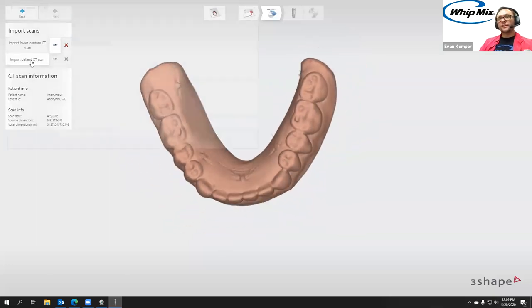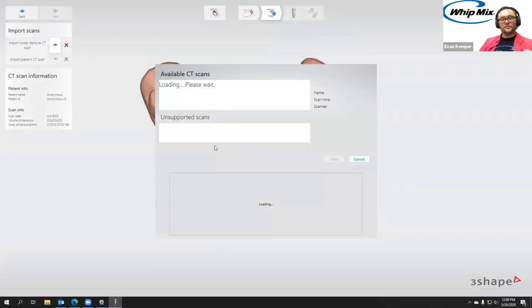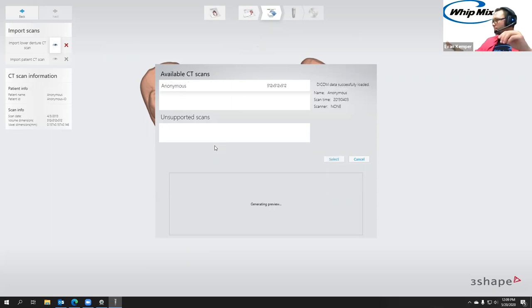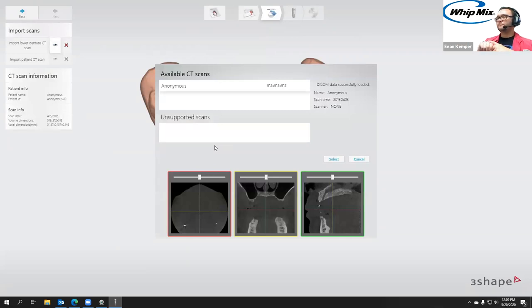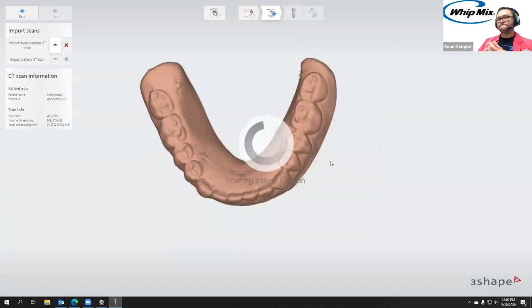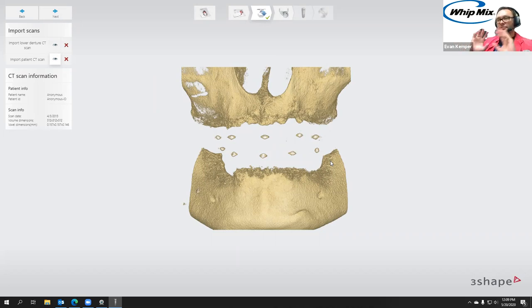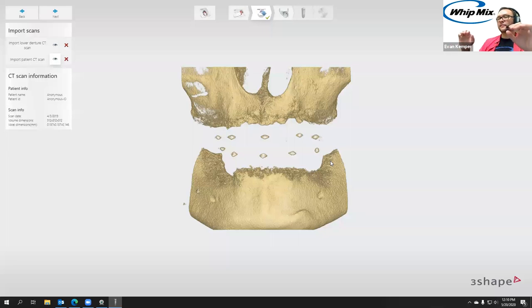That looks good. Now we'll go to import patient CT scan. We're going to go up a level, go in where our head scan is, and hit open. I can scan through these slices and you can see those radiopaque markers right there. When we have just the BBs or the stick-on little metal pieces, without the surface coating and in the patient's mouth, that's giving us the same locators between the two scans that the software will then automatically detect and line up. That's how we're going to relate the two scans.